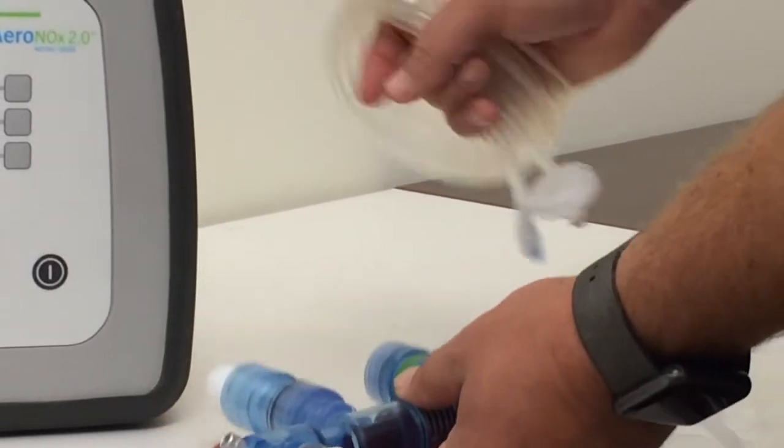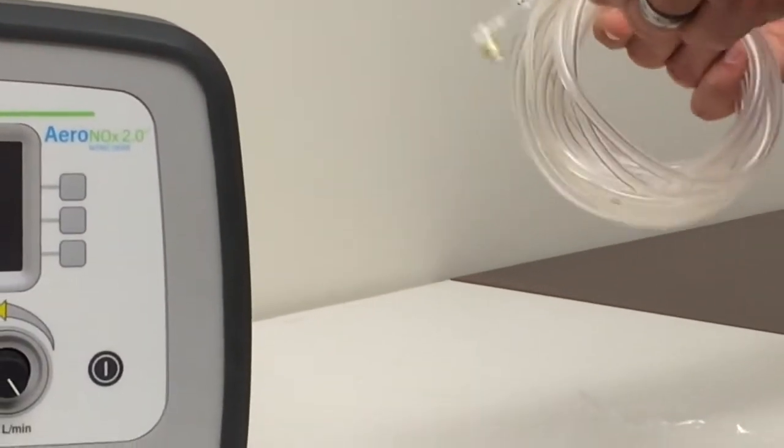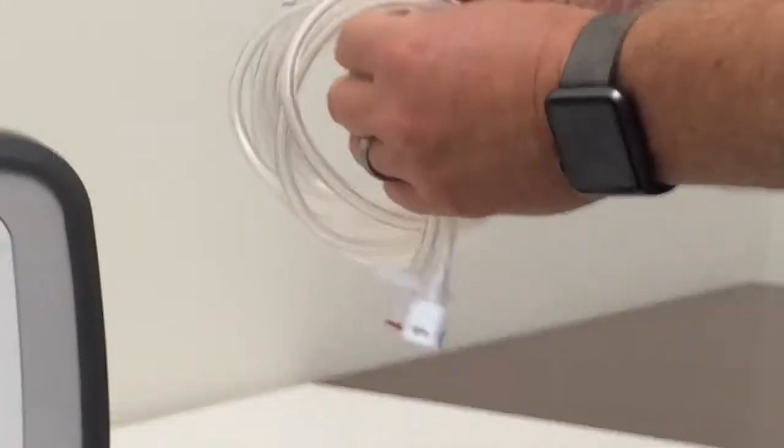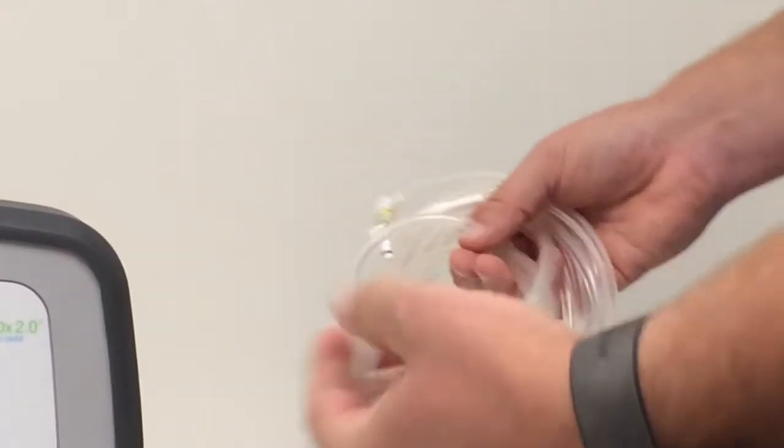To hook the Aeronox up, we've got a special circuit. There's no wrong way to hook this up because we've got two different connectors, one for sample, one for delivery.